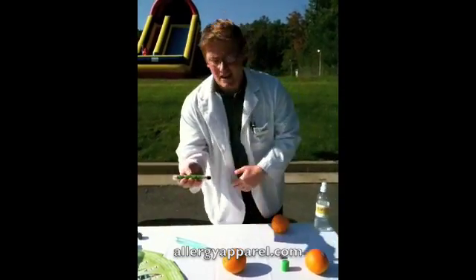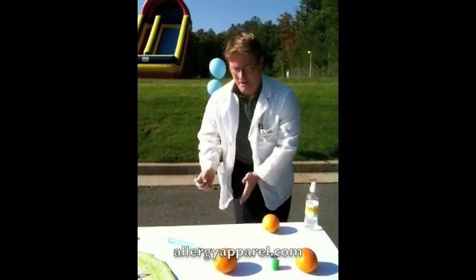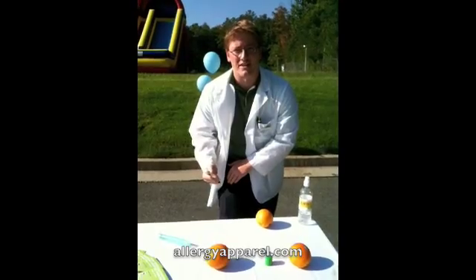The EpiPen is now live and ready to use. You are going to take your dominant hand and aim along your thigh — not on the top, not on the direct side, but on the outer top. You are going to put the force into your thigh and hold it for 10 seconds.